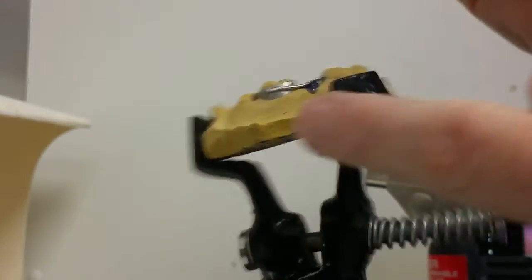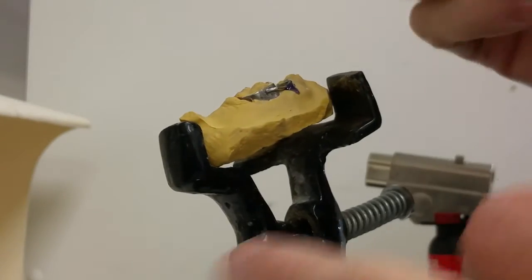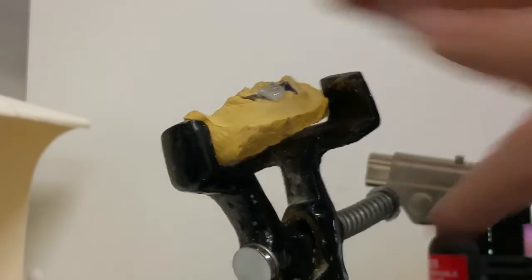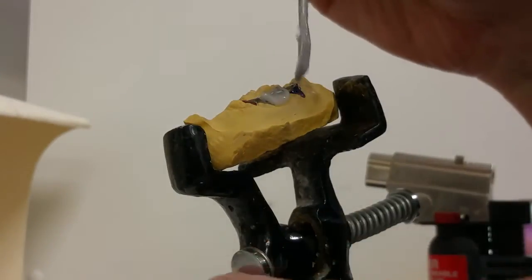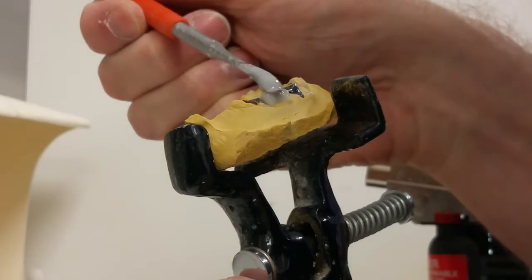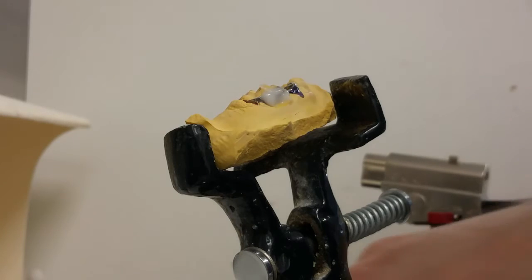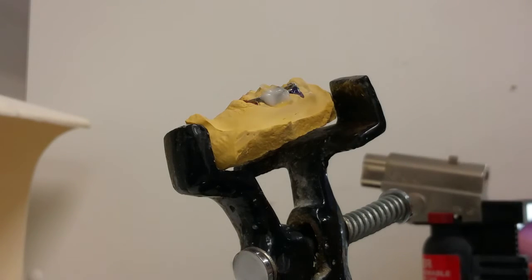If you see the wire start to turn black, be wary. Try to put your flux on it immediately. If it starts to turn red, you probably ruin the wire. You may not be able to get flux on there because it oxidized the wire. There's too many impurities that came out of the wire.